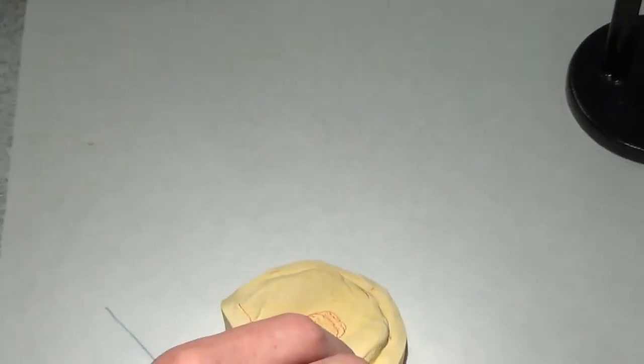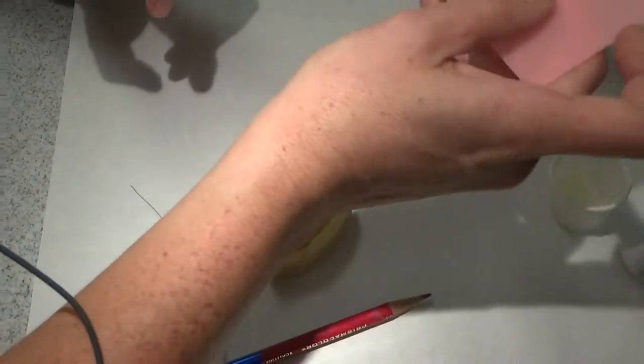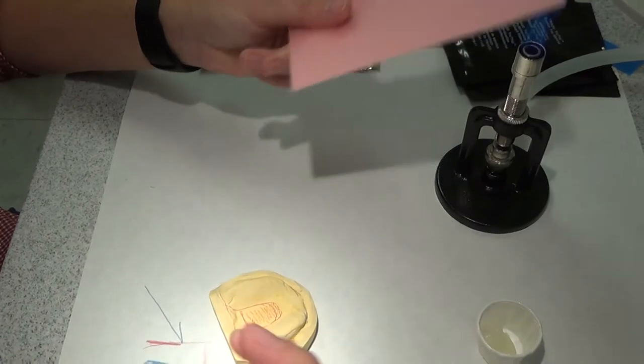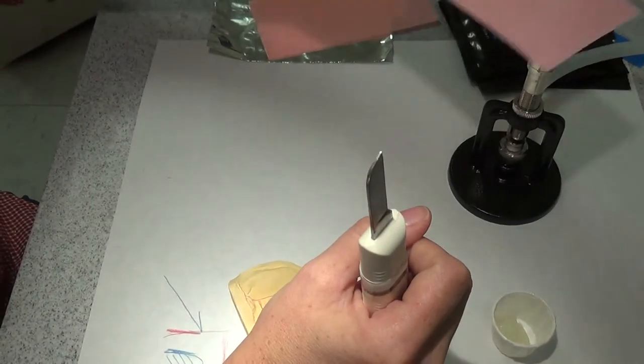So the first thing I want to do is draw all my lines. I'm happy with that. I'm going to heat up my wax.